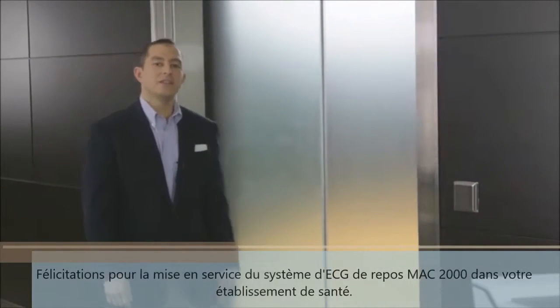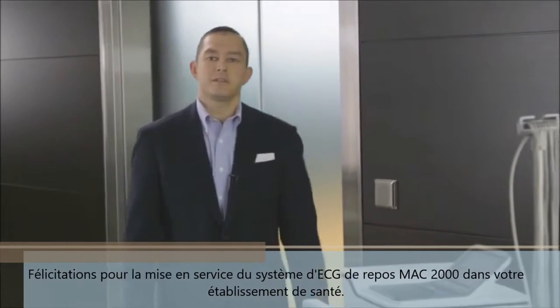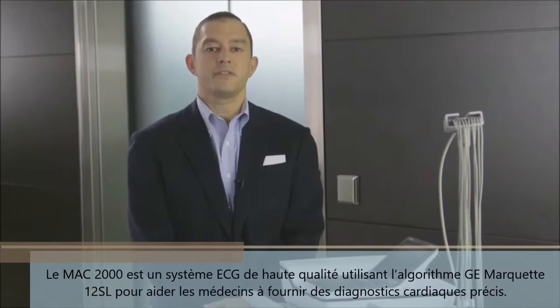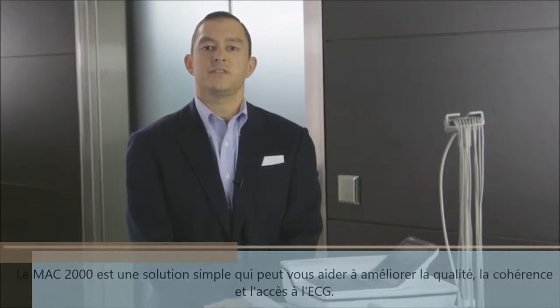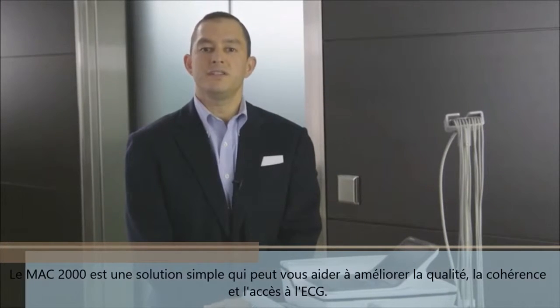Congratulations on implementing the GE MAC 2000 resting ECG system into your healthcare facility. The MAC 2000 utilizes the Marquette 12SL analysis program to assist physicians in making accurate cardiac diagnoses. This is a simple-to-use ECG solution that can help you improve ECG quality, consistency, and access.